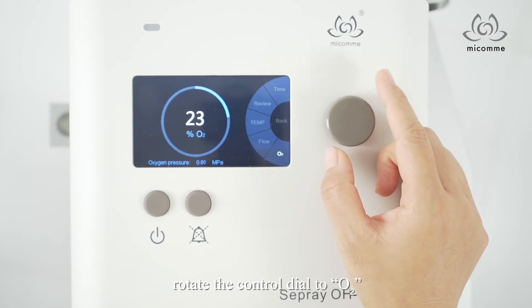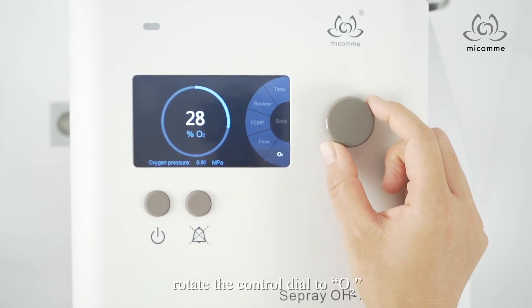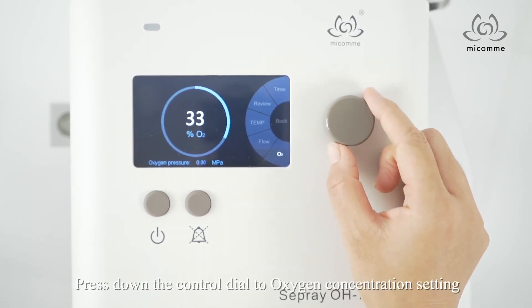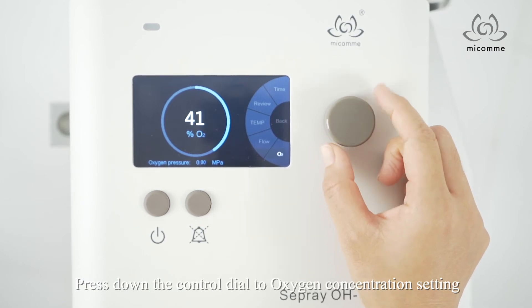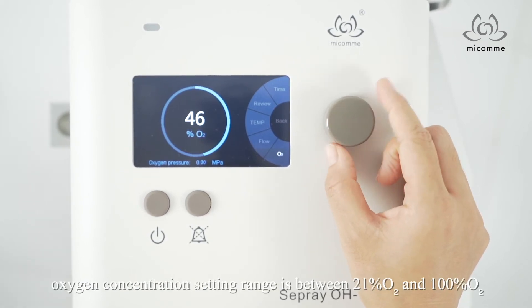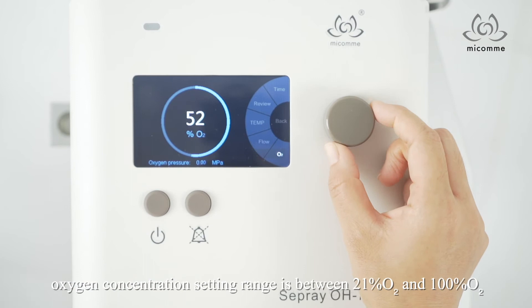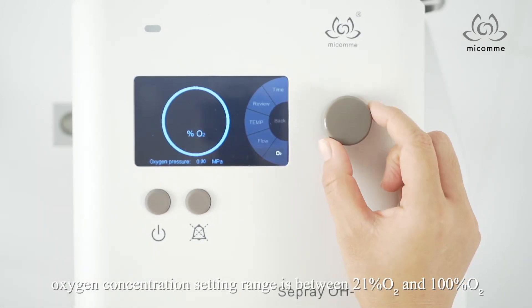Rotate the knob to O2 and press down the knob to oxygen concentration setting. Oxygen concentration setting range is between 21% O2 and 100% O2.